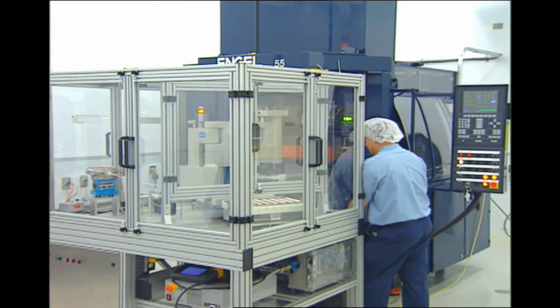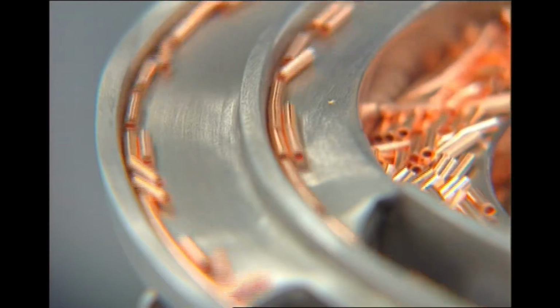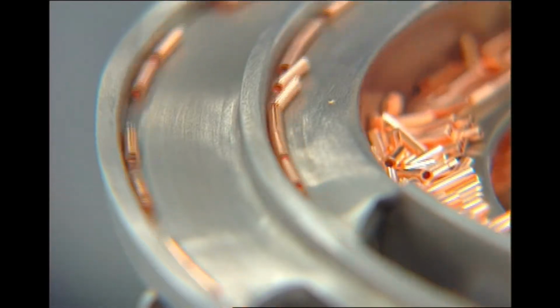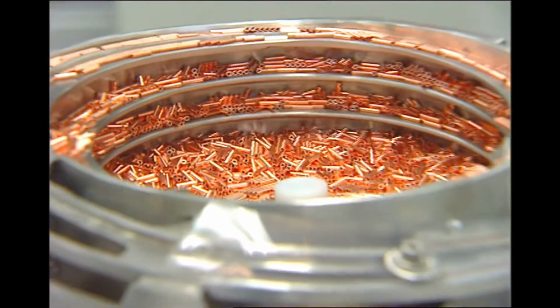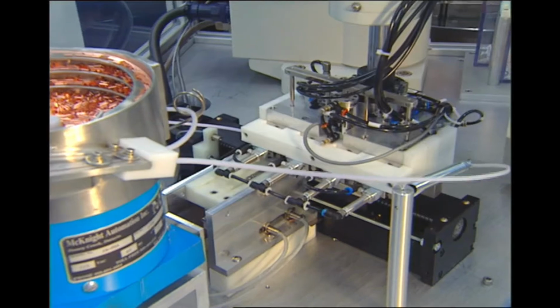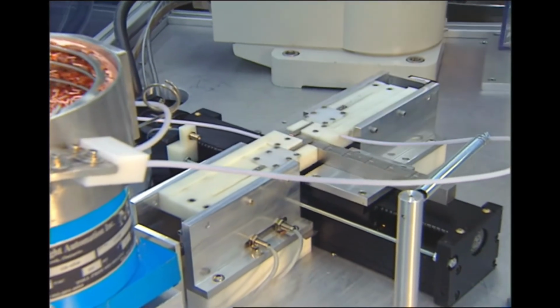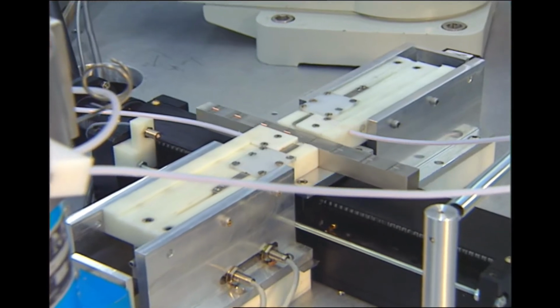Sophisticated proprietary automation has been developed to facilitate the production. By developing this proprietary automation, the handling of the copper cylinders by production personnel is substantially reduced. This has a number of benefits. Potential oxidization of the ultra-pure copper may be reduced along with the microbial bioburden load on the T.